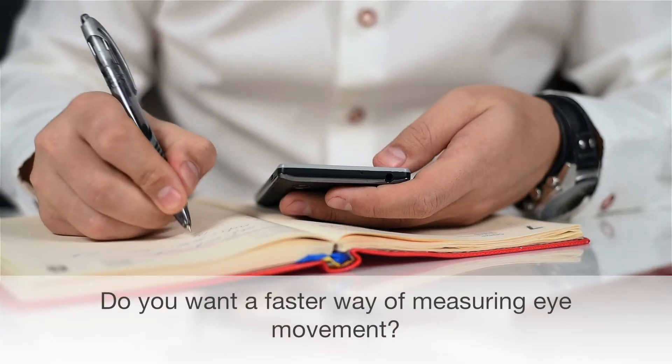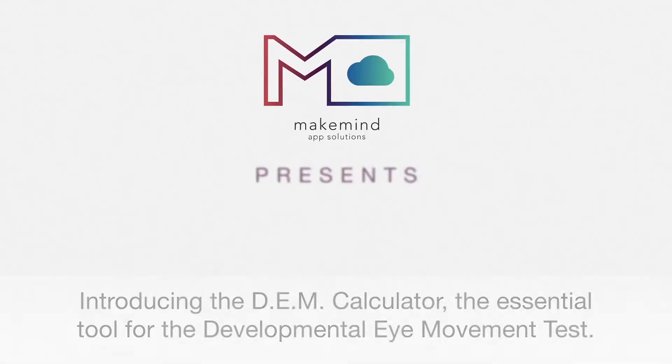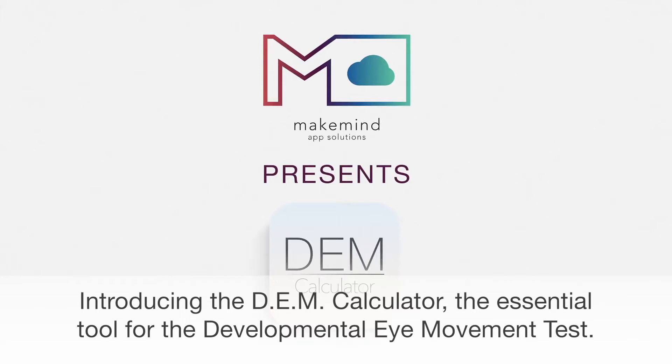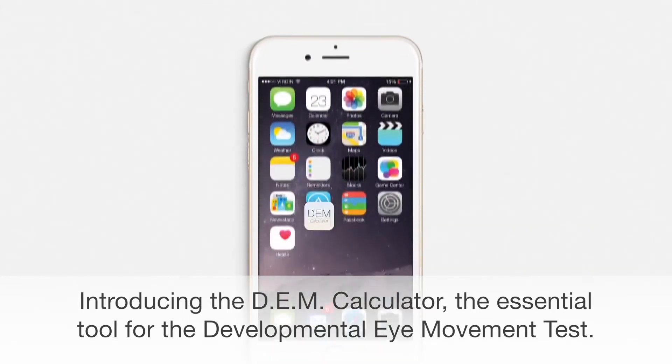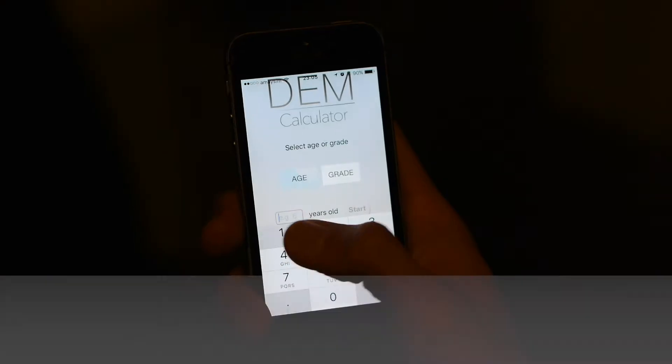Do you want a faster way of measuring eye movement? Introducing the DEM Calculator, the essential tool for the developmental eye movement test.